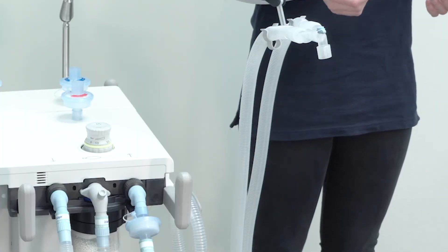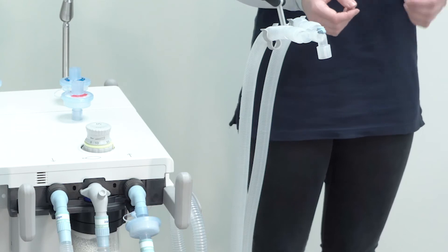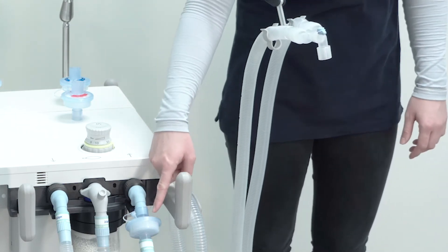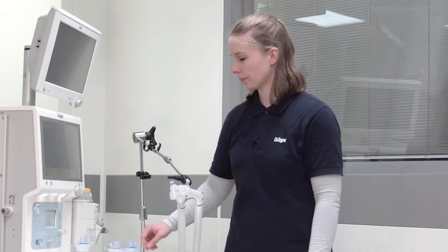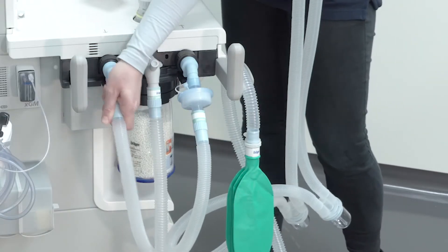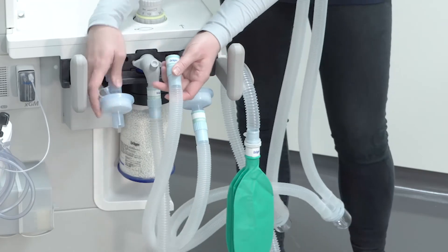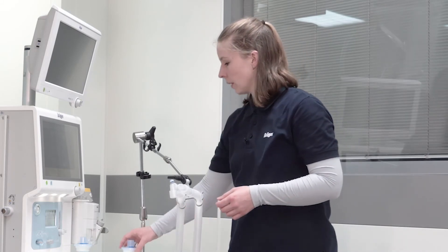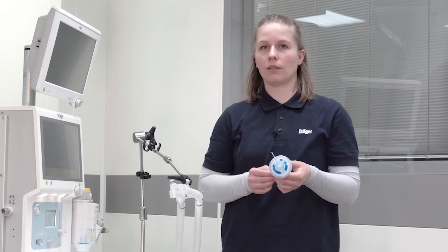We now demonstrate the filter setup for an adult patient. We have already connected the appropriate hose system and the mechanical filter to the device. We now need another mechanical filter to connect on the inspiratory port of the device. As we recommend high fresh gas flows for long-term ventilation with an anesthesia device, we now need another filter at the Y piece.